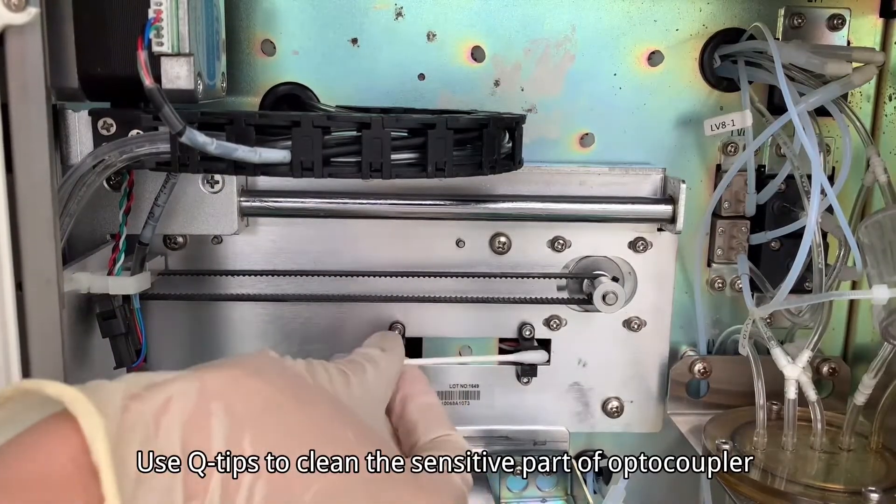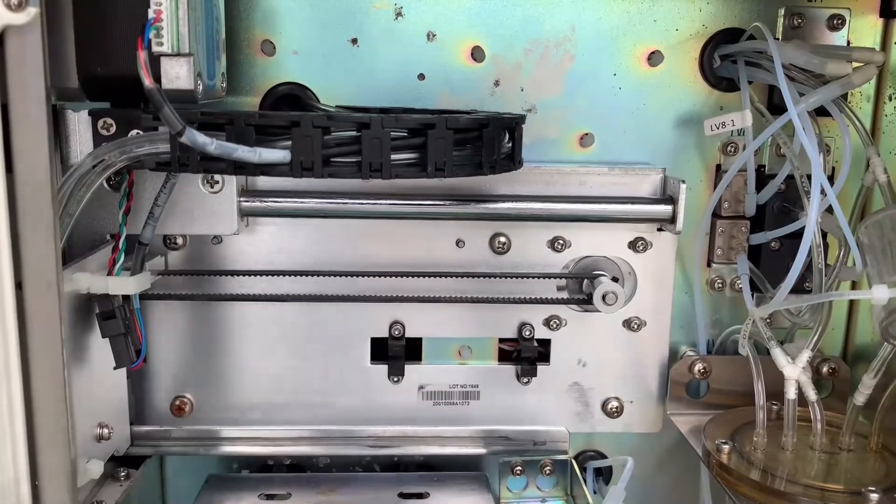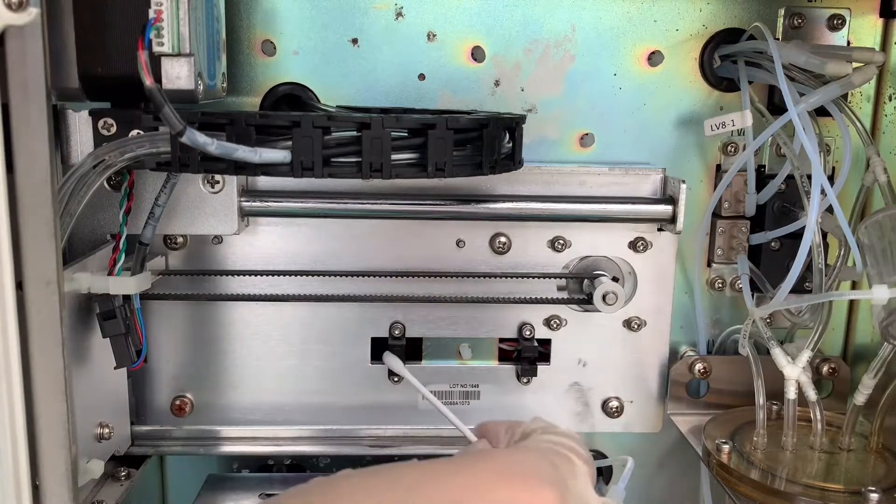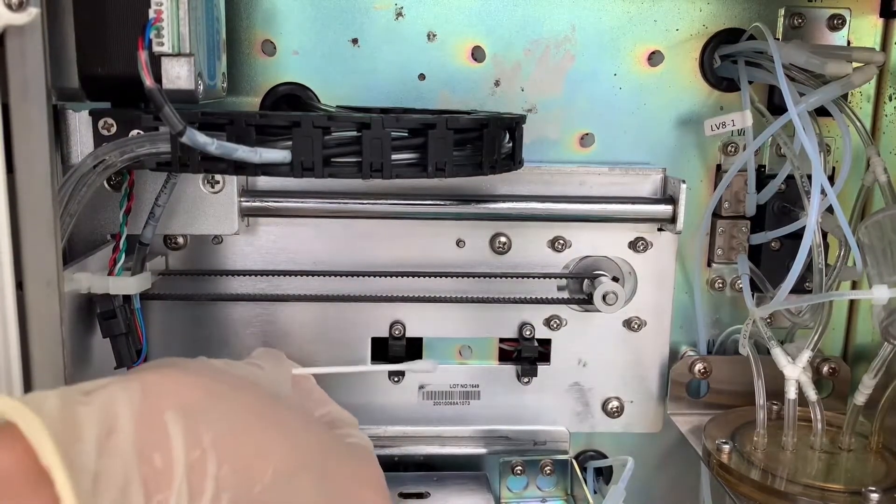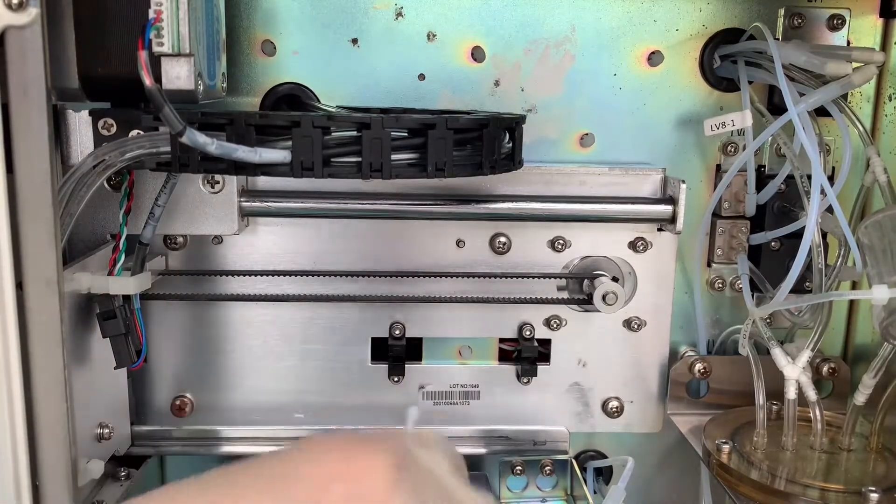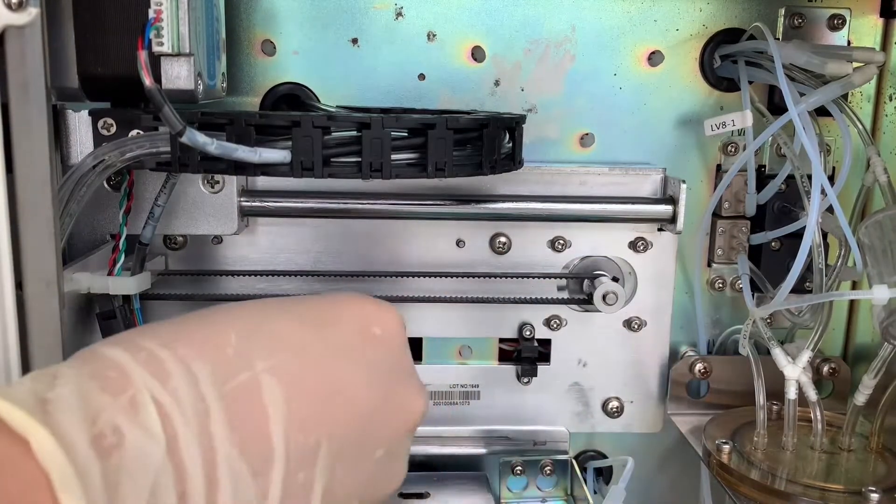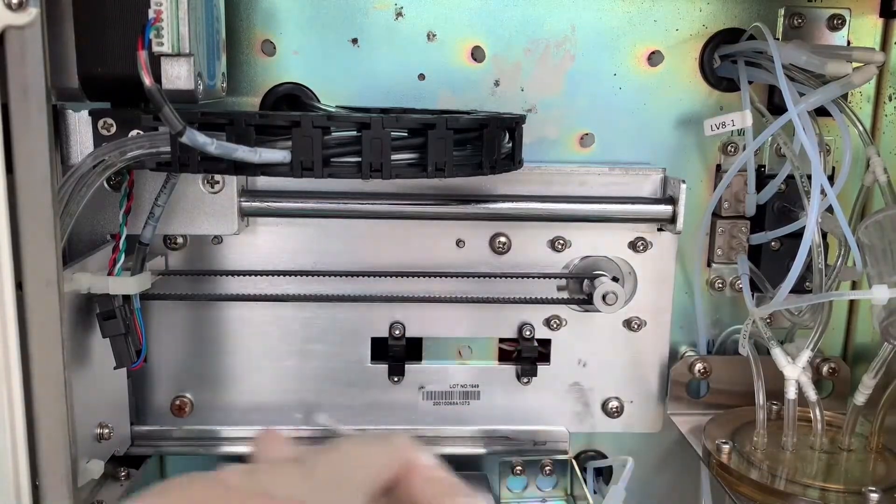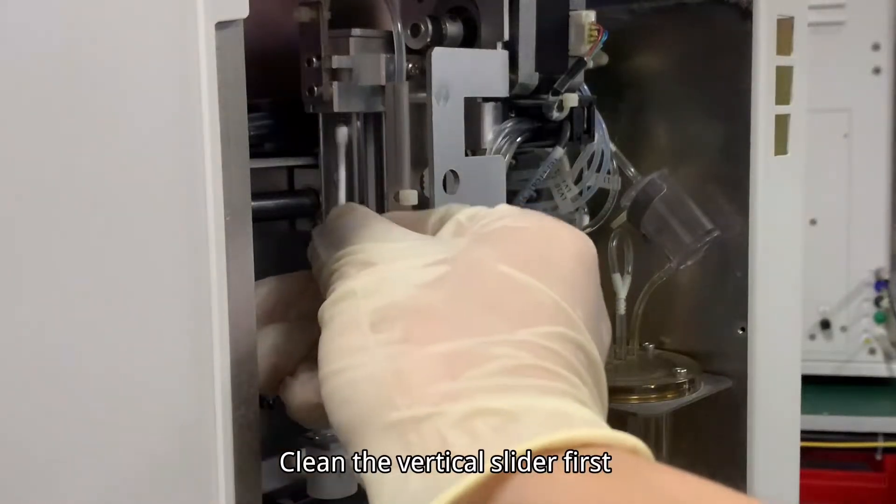Use q-tips to clean the sensitive part of the optocoupler. Clean the vertical slider first.